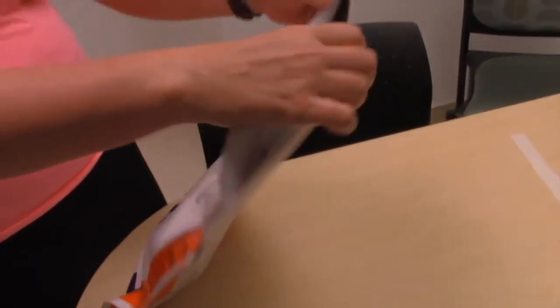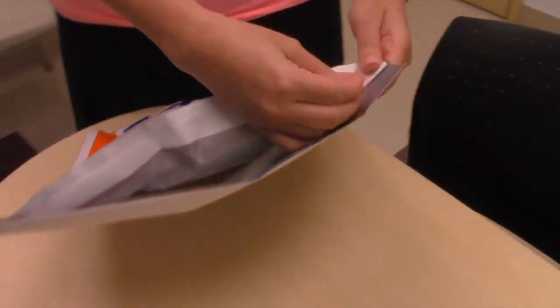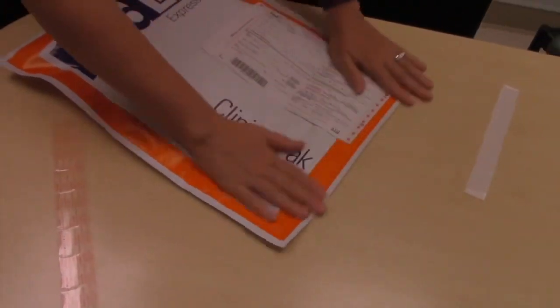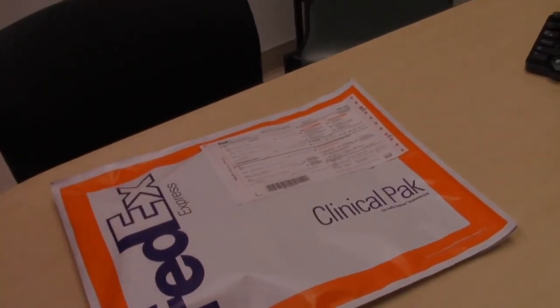You may take the sample to a FedEx dropbox or contact FedEx to have them pick it up at your house using the schedule of FedEx pickup instruction form we have provided.